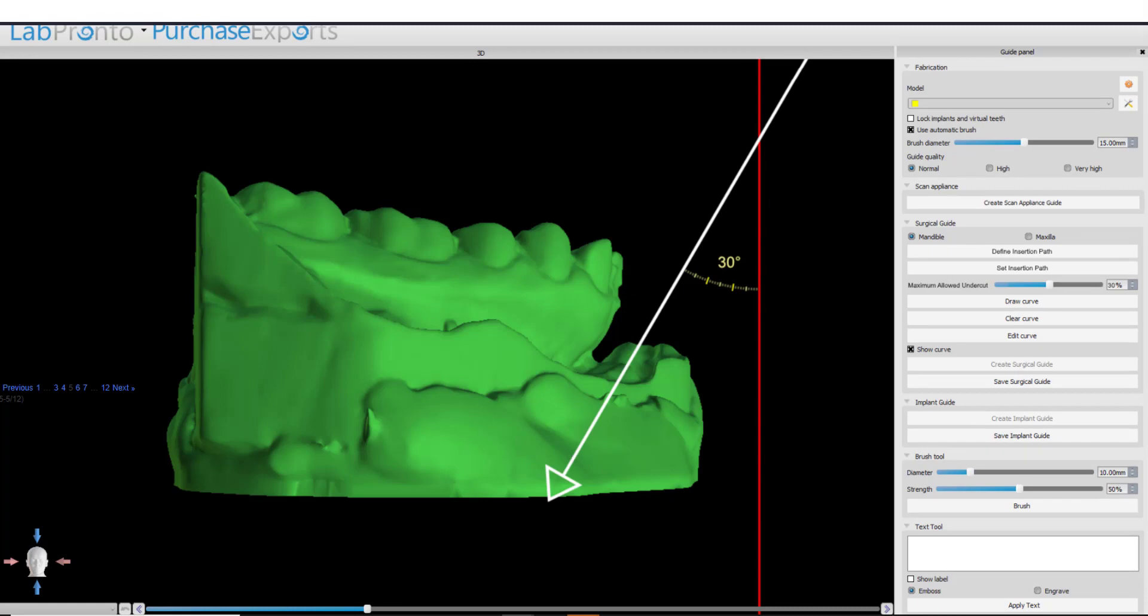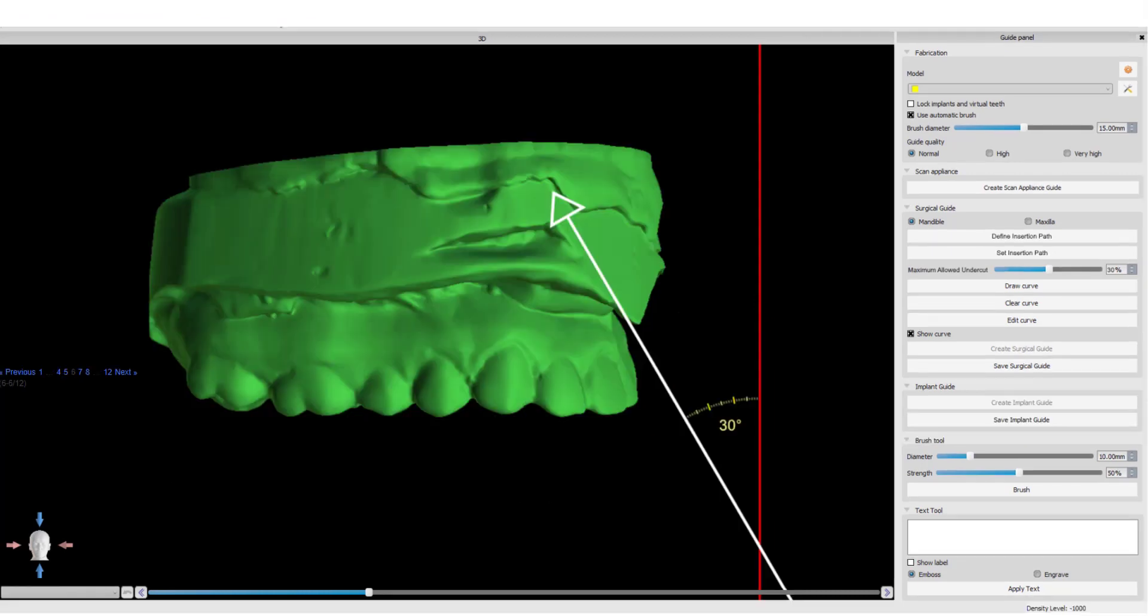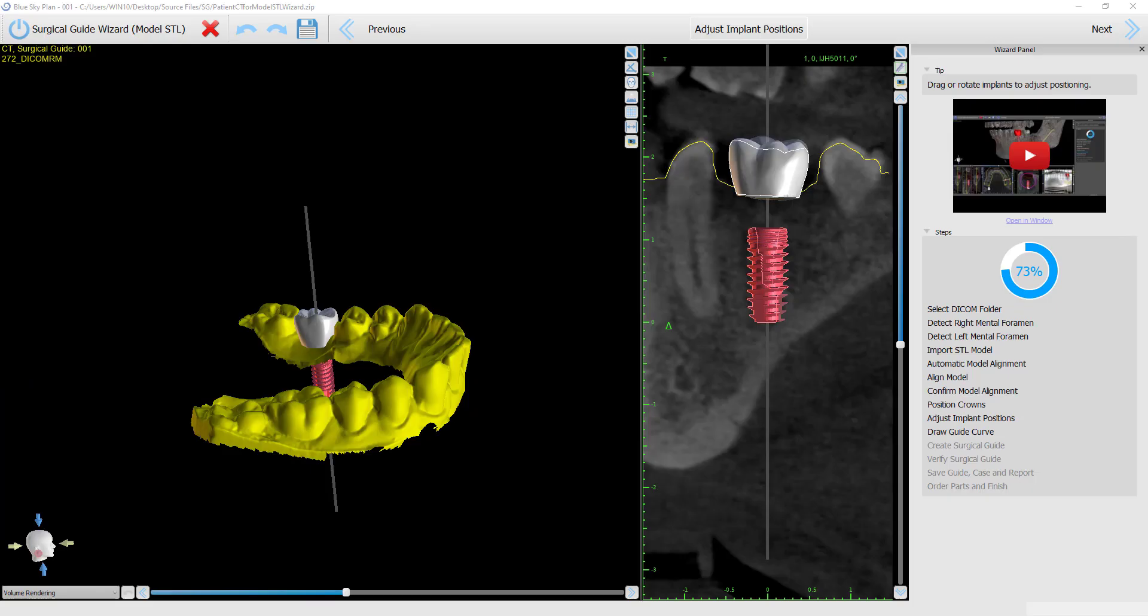Using the wizard process flow, the software takes an automatic default value. As we often do during the wizard, we take a commonly accepted default value and use that as the standard, which happens automatically.